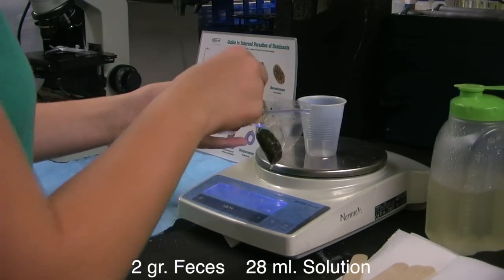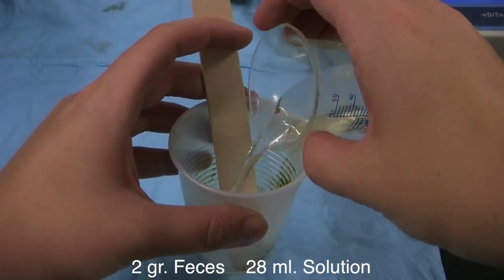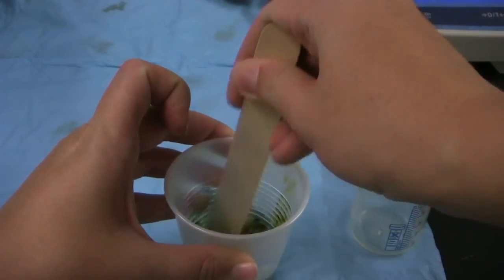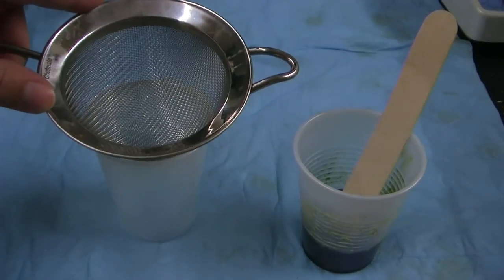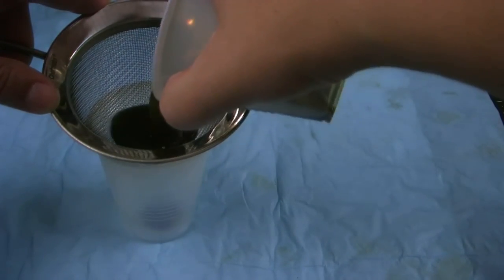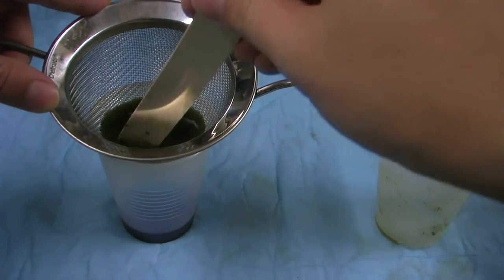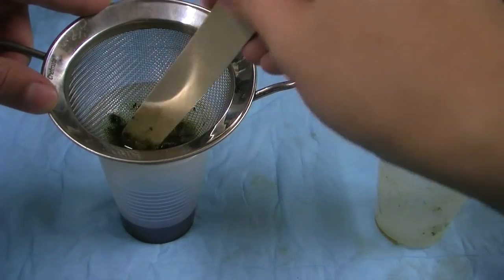Now weigh out 2 grams of feces and add it to 28 milliliters of solution in one of the cups. Break up the feces with a tongue depressor. Once the mixture is completely homogenized, pour through a tea strainer or cheesecloth and allow all the solution to drain through. This step removes large pieces of debris, which can make reading the slide difficult. Either piece of equipment works well, as long as the feces has been properly broken up.